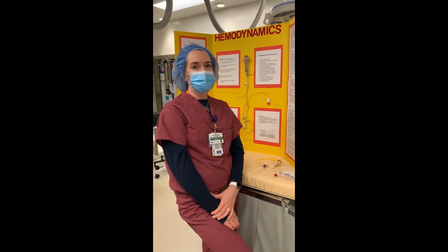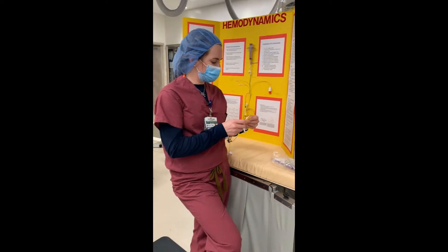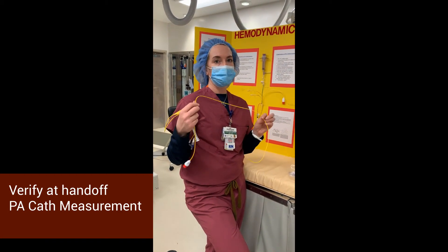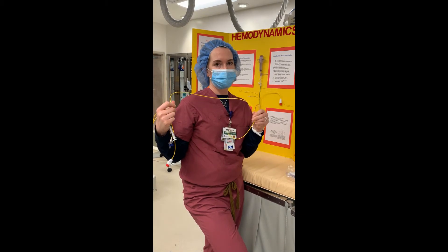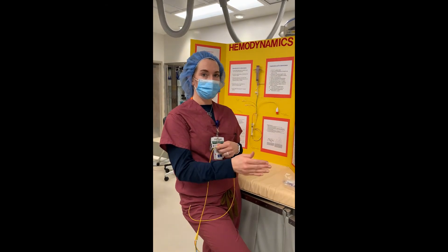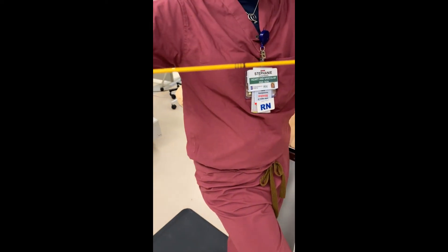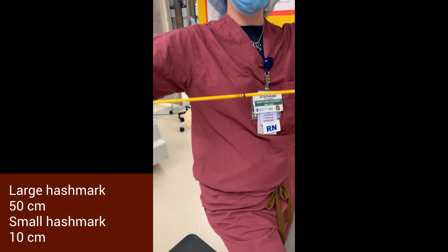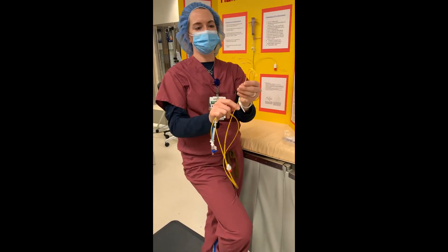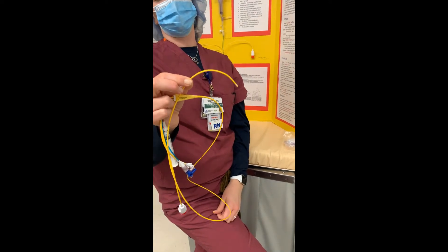Now let's talk about nursing implications. You have this catheter and the patient has been delivered to you — you're going to want to know where your catheter is. If it gets too far out into the pulmonary artery, remember it can spontaneously wedge; these things can move. You need to know how to measure it, know where it was when the patient left the cath lab, and where it is now. The catheter has markings: a big black line means 50 centimeters; small black lines mean 10 centimeters.